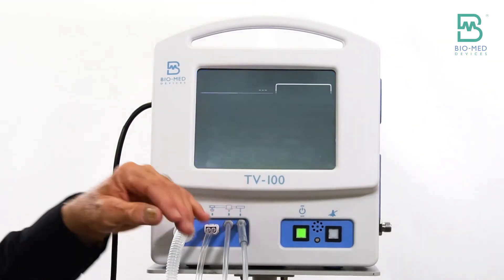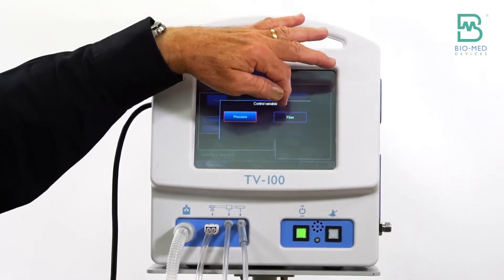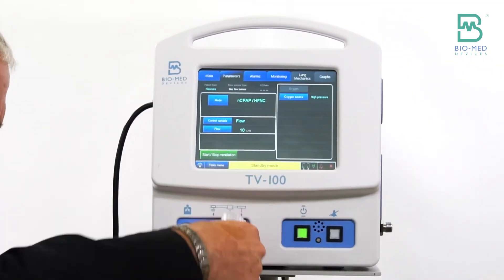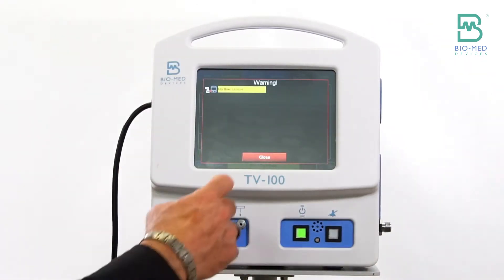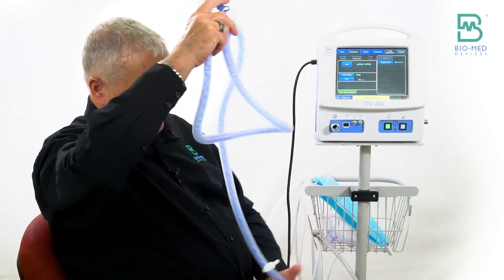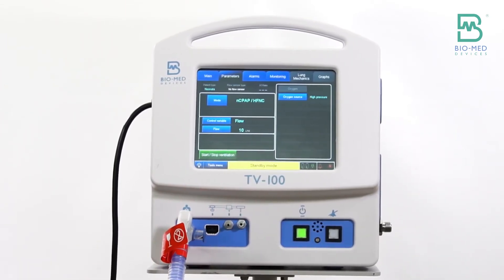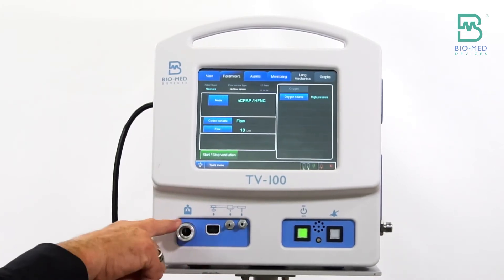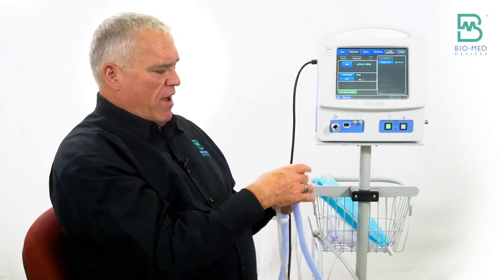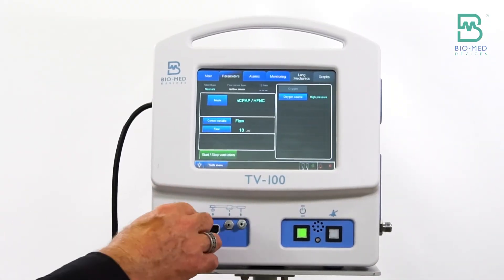Let's say we want to do high flow nasal cannula, so I'm going to change from pressure to flow. You're not using your regular circuit in this case — I'm using a heated wire circuit from Fisher and Paykel. You're going to connect to the output. Normally you would go from here to the heater, because if you're doing high flow nasal cannula you want to heat and humidify the gas so the patient is comfortable, but for demo purposes I'm connecting directly.